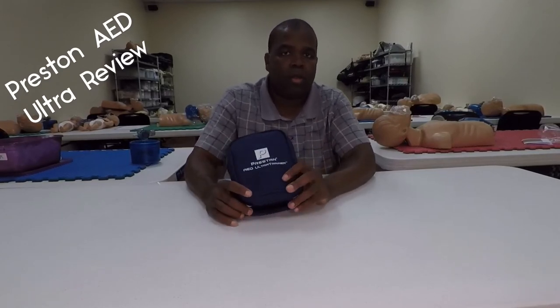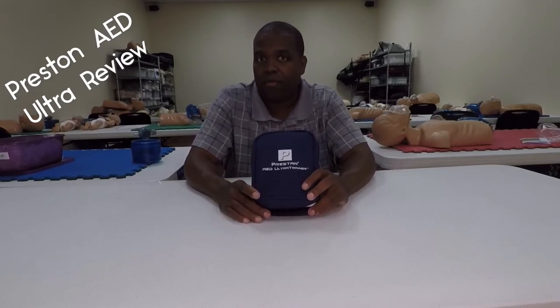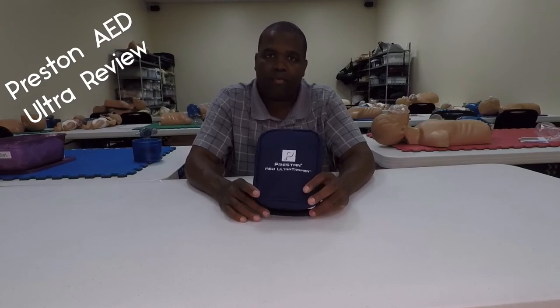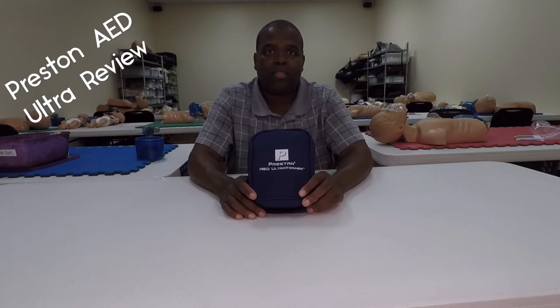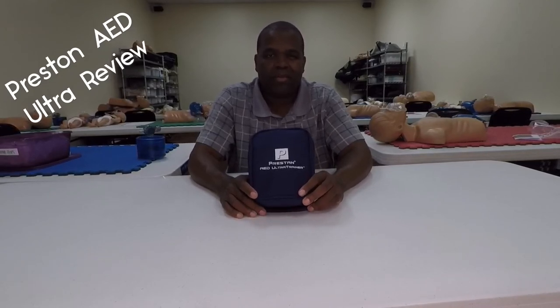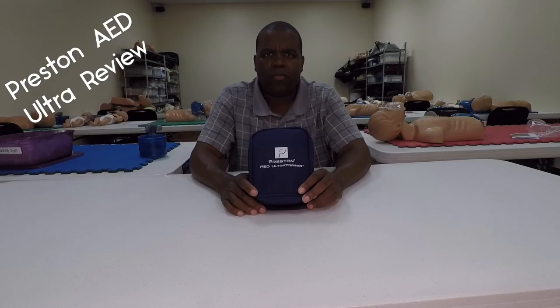All in all, I think it's a good product. You will have to make the decision on whether it'll work out for you and whether it's something that'll benefit you — there are pros and cons to every product. Make sure you do your research and check the different prices. You don't want to pay twice the price because you didn't research pricing. They're averaging about $100 to maybe $110, $115 being about the most we saw when looking for these.